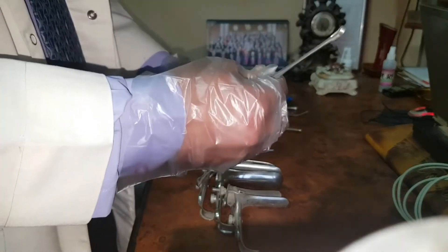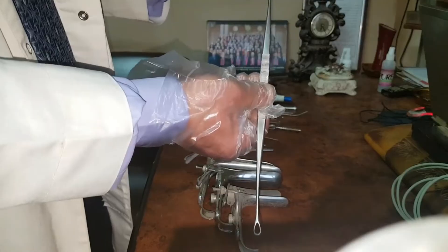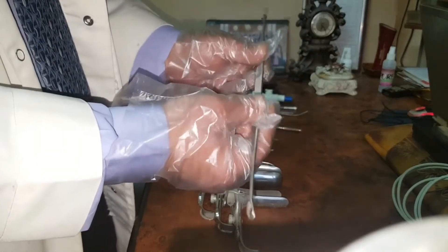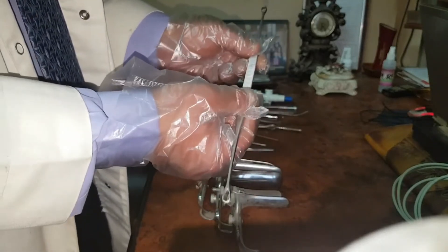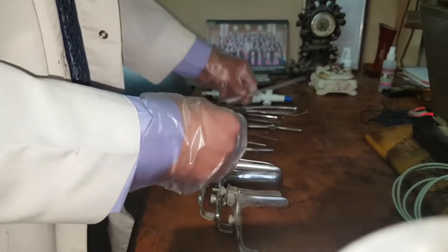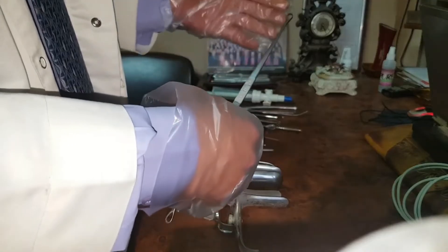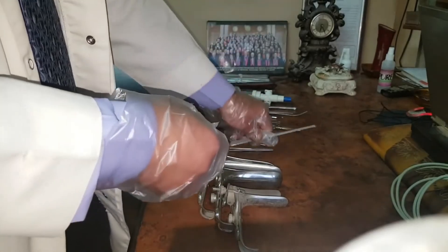This is a curette — an endometrial curette, metal curette — with a sharp edge here and a blunt edge here. It is used to take endometrial biopsy during D&C, and also for evacuation of the uterus in case of missed abortion. It can be used in gynecology for abnormal uterine bleeding when you want to take an endometrial sample, or in obstetrics in case of incomplete abortion when you want to curet and evacuate the uterine content.